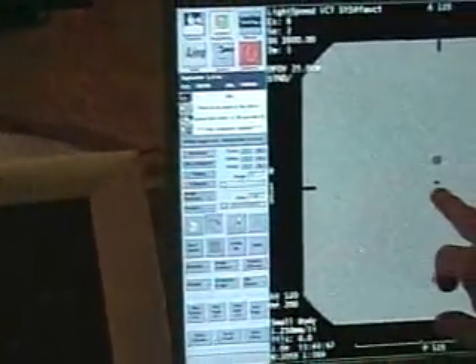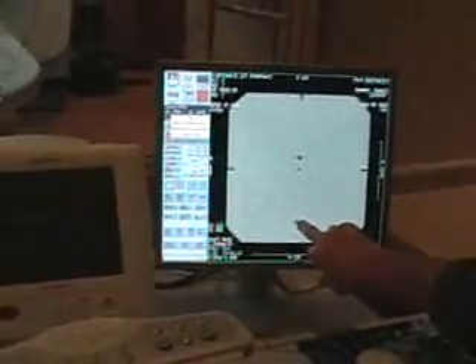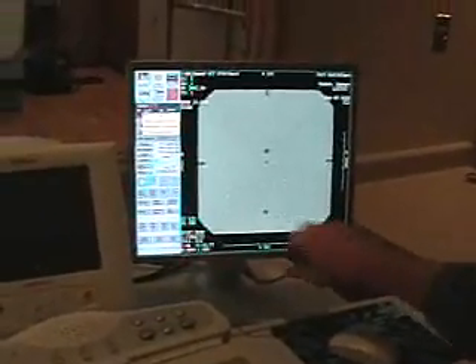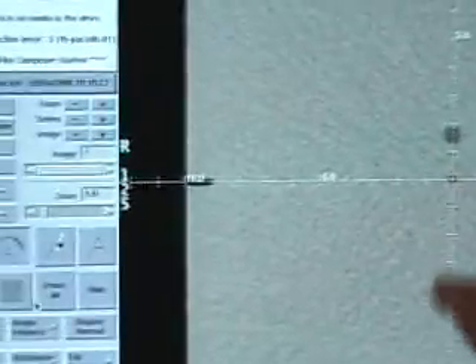At this point, you're only concerned with the pins and the center hole. You don't need to be concerned about the two other spots because those are just for holding the ruler onto the phantom during calibration. Come over here, click on the crosshatch, and make sure it goes through there. If it's not going through these pins, you need to physically go out and move the phantom one way or another.